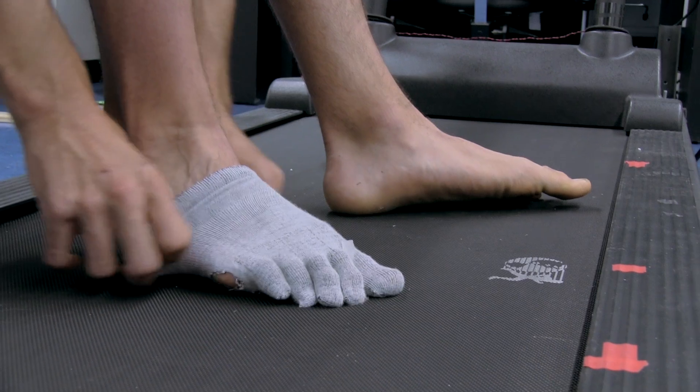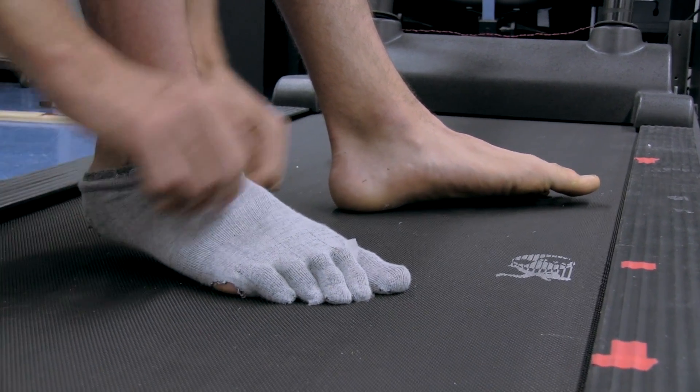And we have force transducers that we put in socks and our subjects walk with them and that helps us find out how they distribute the weight on their feet when they walk.